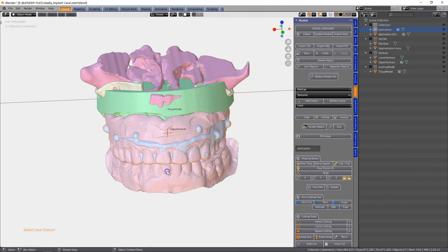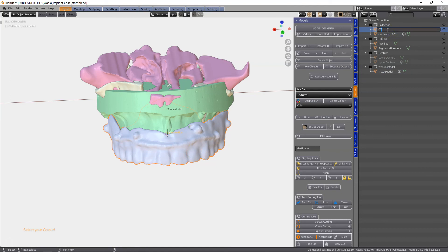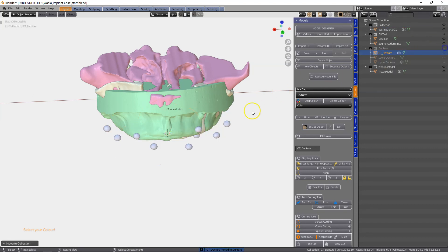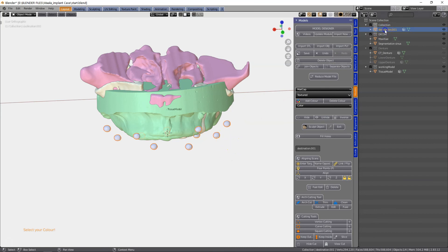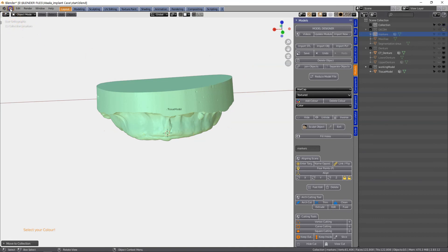We've still got these little balls, which we can also put into a collection. This is our denture as well — I'm going to put this into the denture category. So this is the CT denture. And we're going to throw this into the denture collection. And then we've got these markers — we're going to put those into the DICOM collection because it's part of the DICOM. Markers. Remove. DICOM. So we can now continue. Please always save your stuff as you go.